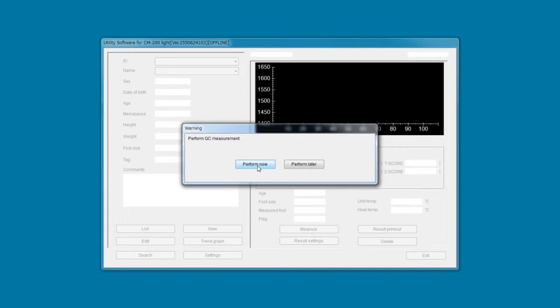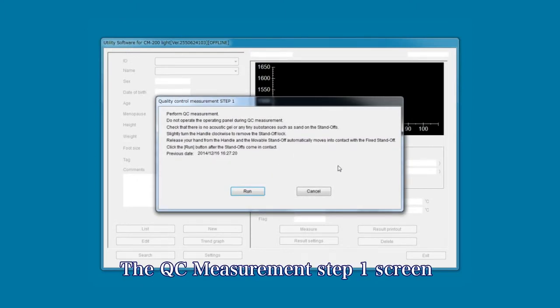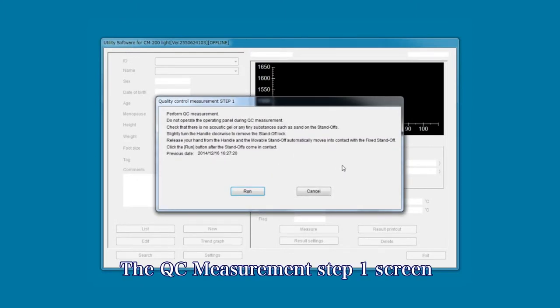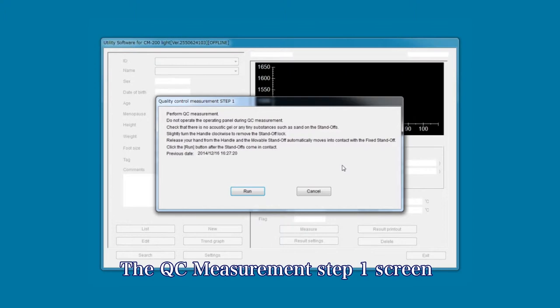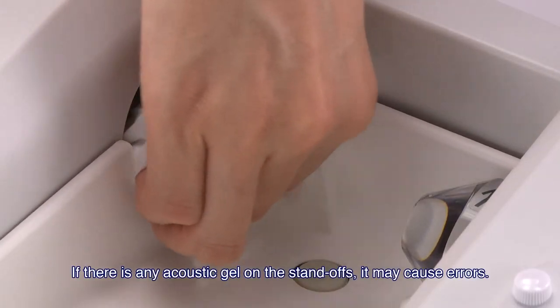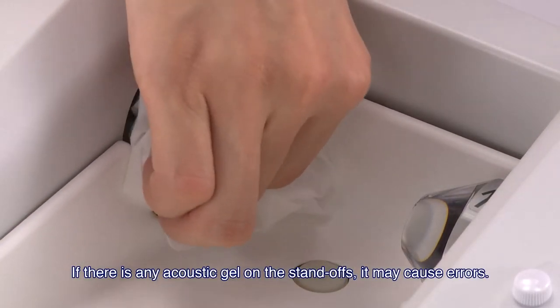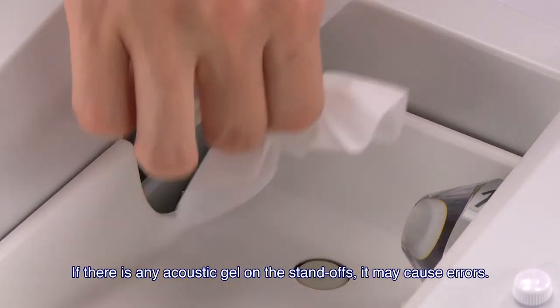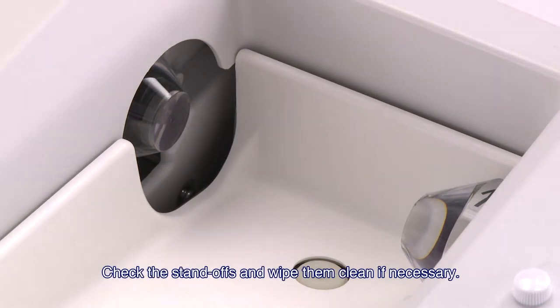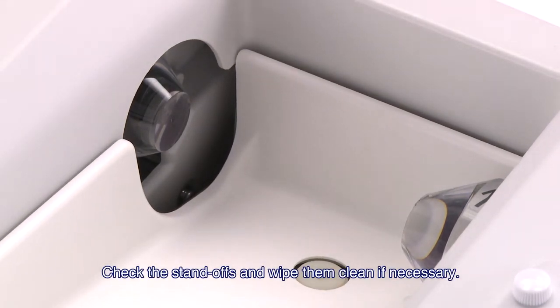After clicking the start button, the QC measurement step 1 screen is displayed. If there is any acoustic gel on the standoff, it may cause errors. Check the standoffs and wipe them clean if necessary.